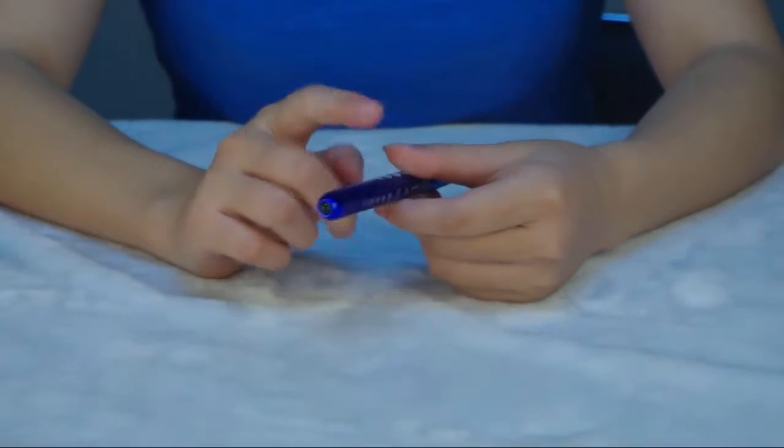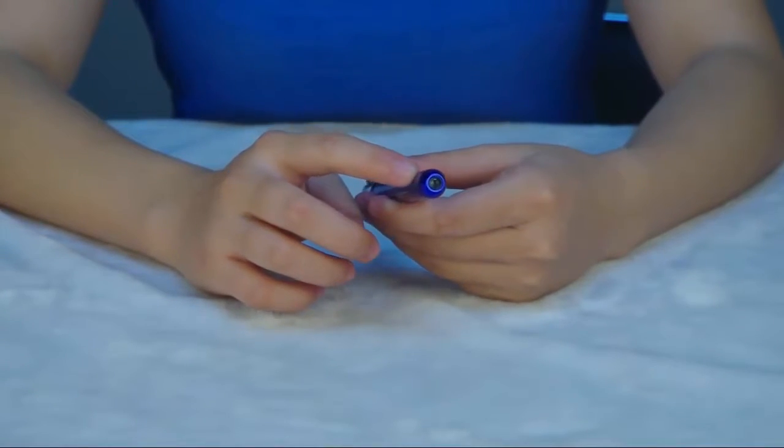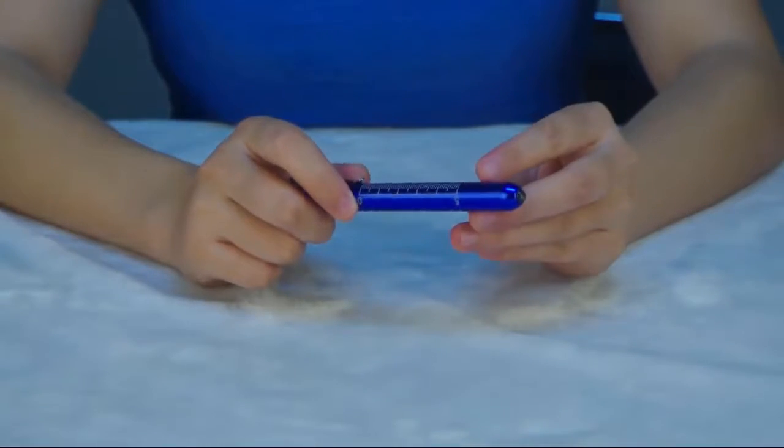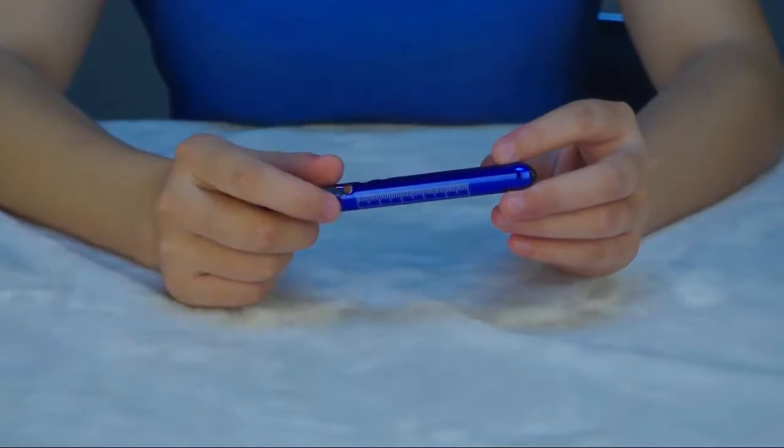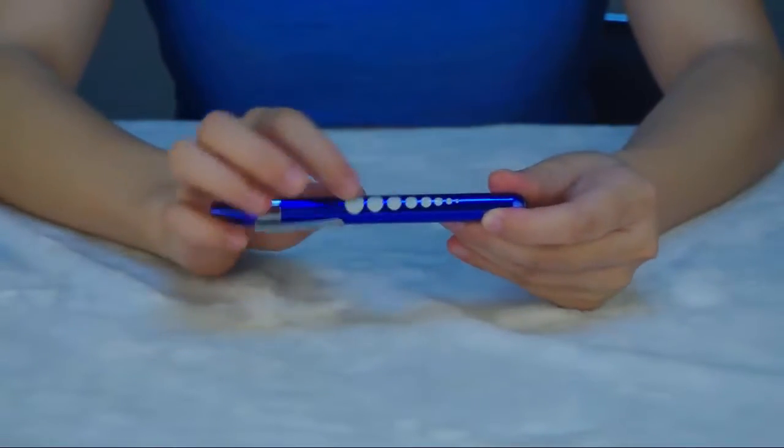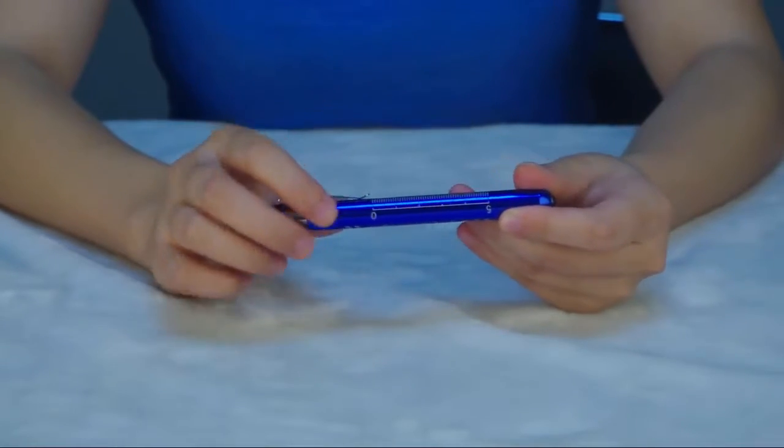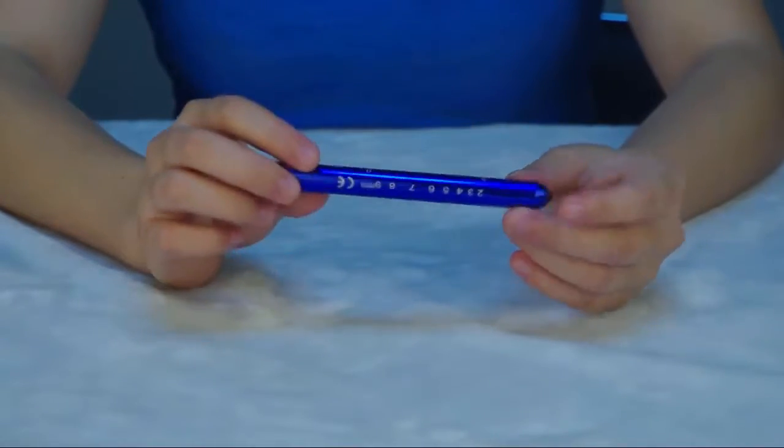The body of the pen light is made of aluminum alloy. The pen is electroplated and both the pupil gauge and scale are sealed by laser style.